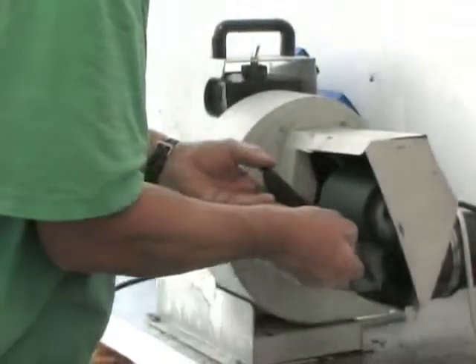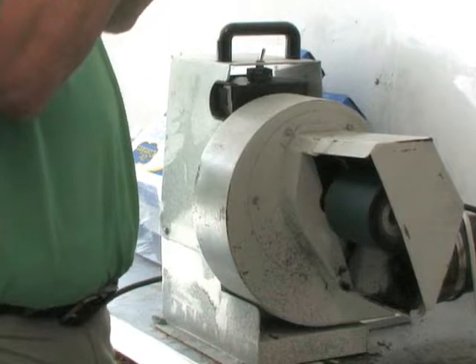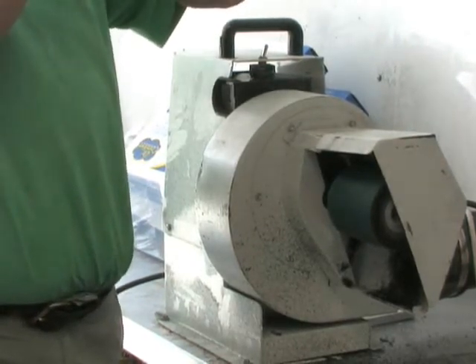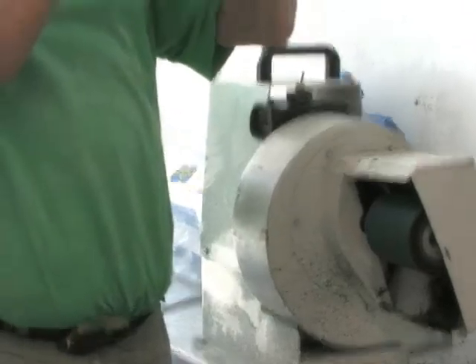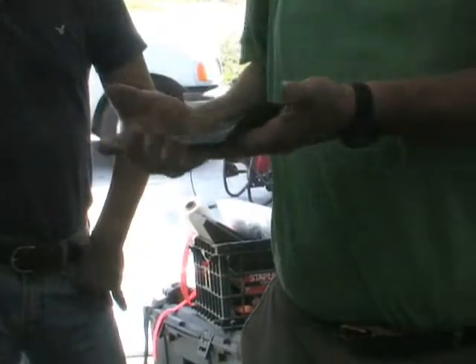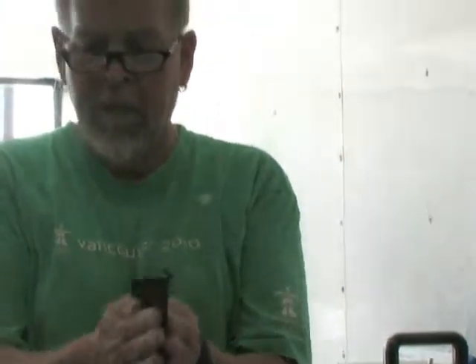I come down this lateral border and connect the dot from here to here — I have a nice lateral border, nice and level. This is my wedge — it's got a little hump right here. I just go down to the side and now I get a nice lateral arch or medial arch. Everything gets nice and equal right here. But this is too wide to go in the shoe.